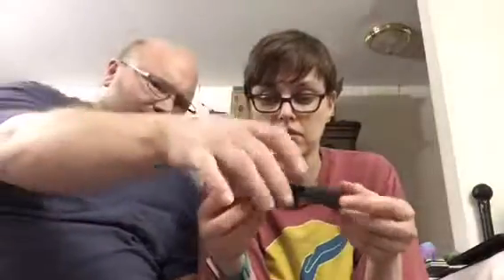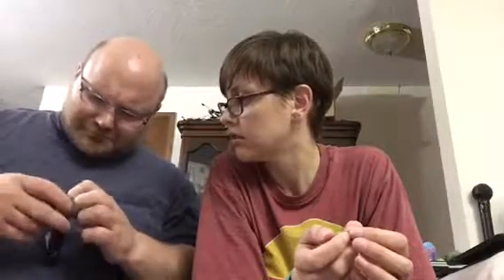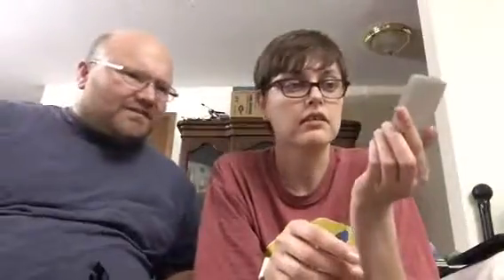This all came with the sound processor. And then this other thing - I couldn't figure out how to open the box, so I let him try. Oh, that's a weird way to open the box. I think it might just be the case - oh, this is a silicone case for it, to protect it! That's nice and handy.